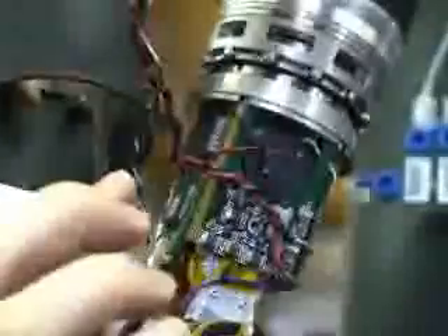Technology like lithium batteries got within reach, and in the last few years processing became ubiquitous — the size and power consumption of processors got within reach of doing this. There are actually 12 microprocessors in the arm.